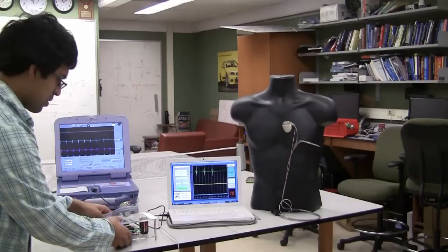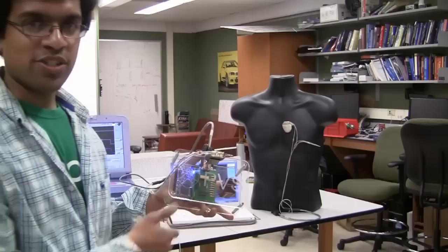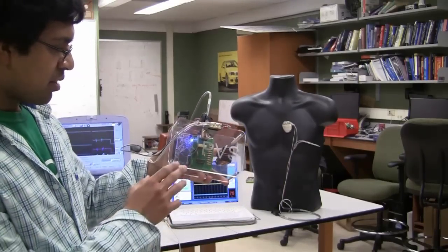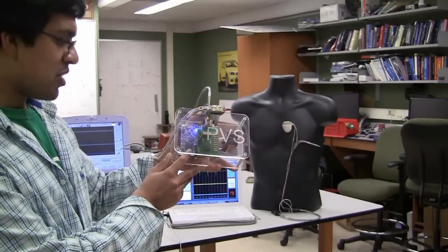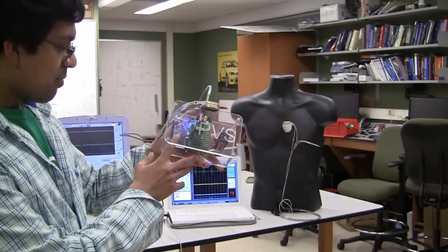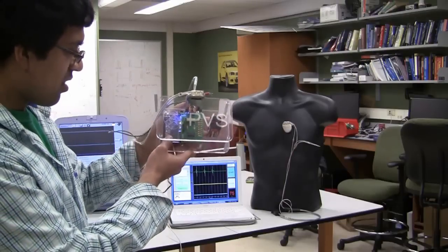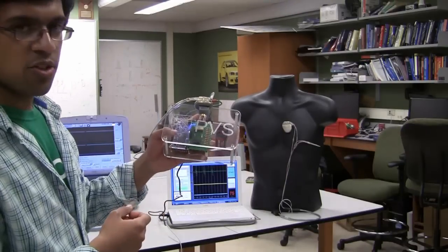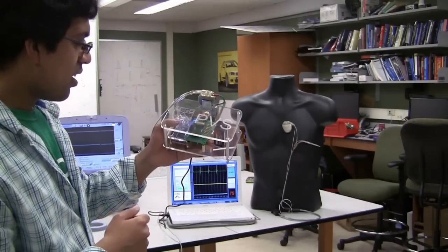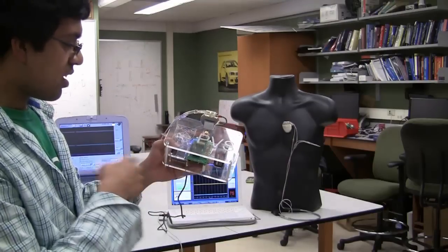That's where our device comes into play. This is the pacemaker verification system. It consists of a couple of components. One is the virtual heart on a chip, which is an FPGA. This heart models the electrophysiology of the nodes and paths that are present in the heart. We can use this to simulate different arrhythmias that a heart like yours or mine could have. We can then interface that heart with an actual pacemaker, and we can see the interactions.